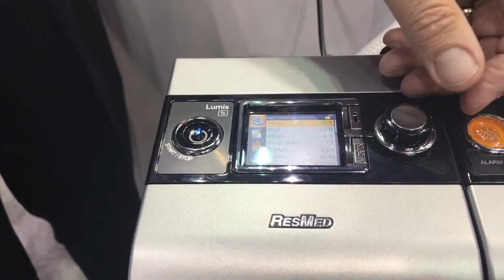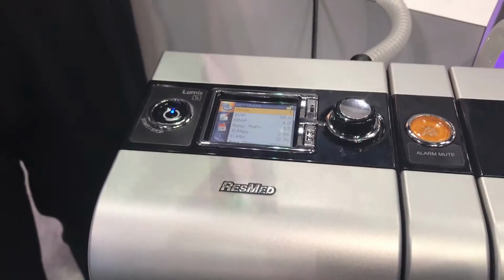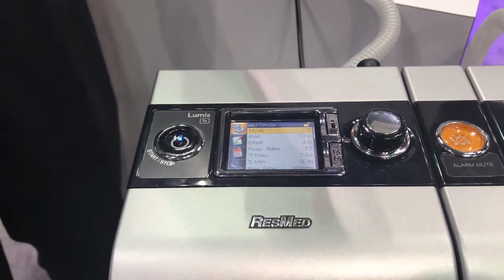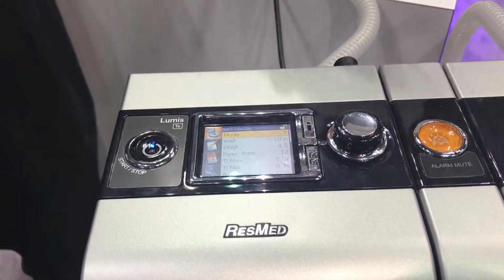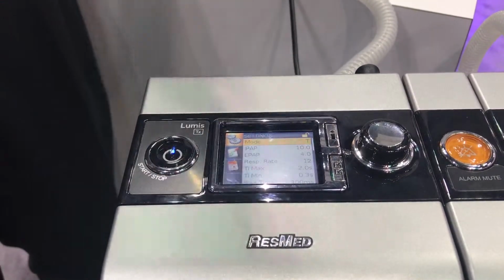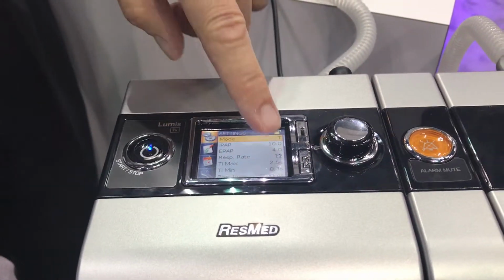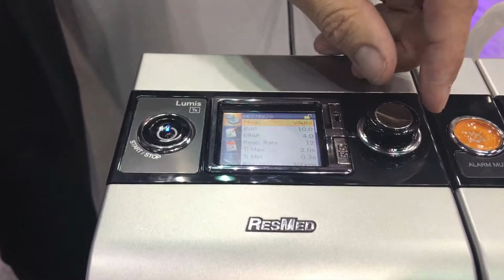If the physician wants a timed mode, this would be unusual, but let's say a patient had a hiccup disorder. And you don't want the device to trigger IPAP, EPAP every time the patient hiccups because they're hyperventilating. So I could do a timed mode that just eliminates the assisting function. If you set a rate of 12, it's only going to cycle 12 times, regardless of the patient's effort.